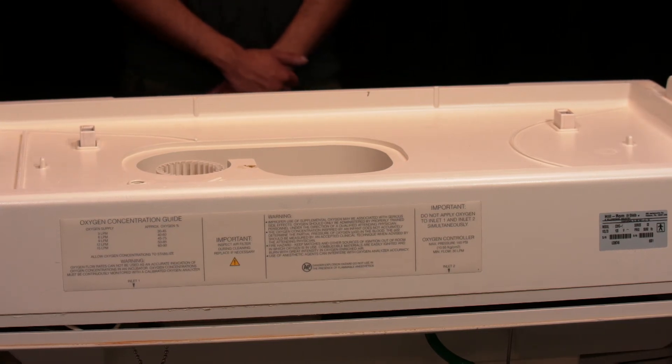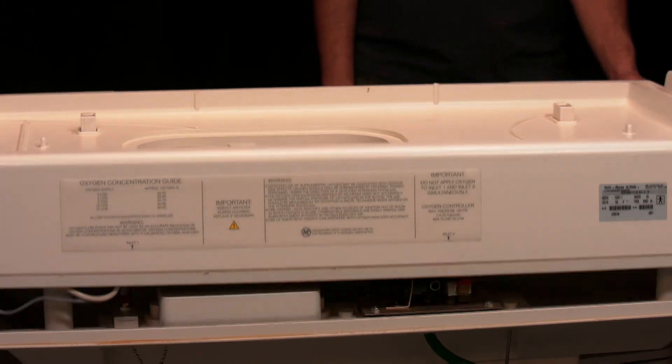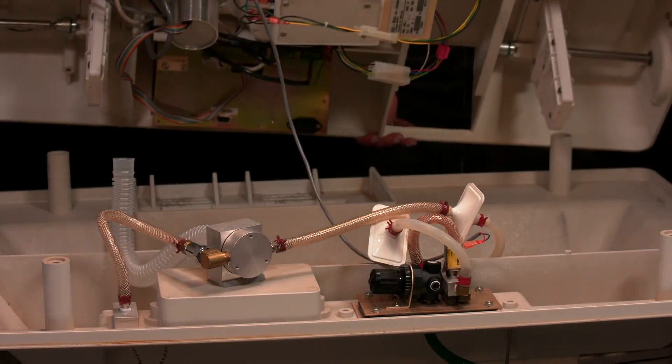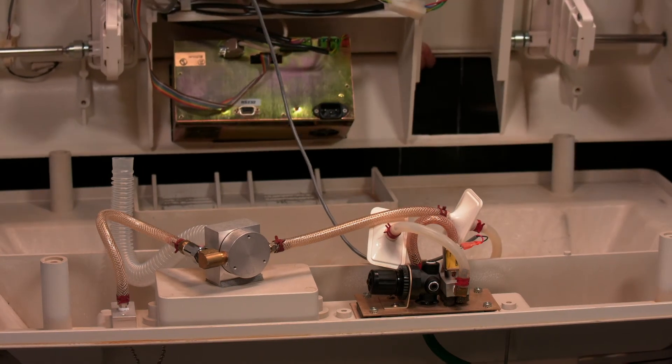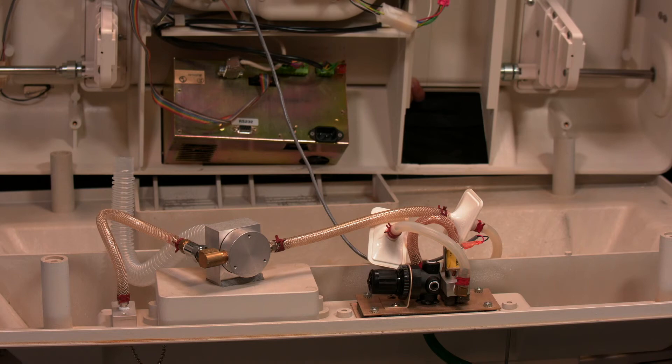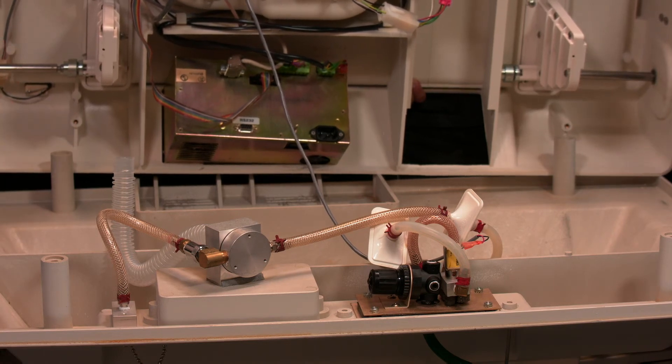After that, you can lift up the casing using the handlebars on the sides. It's quite heavy, so when looking at this, there's still some fluid inside, so that is leaking, but it shouldn't affect the rest of the circuitry.